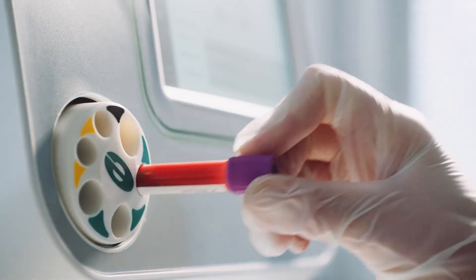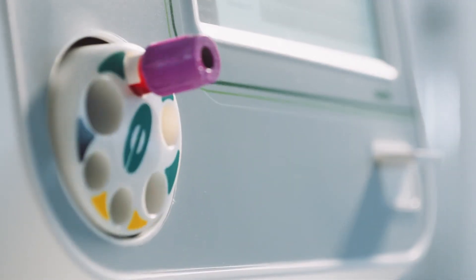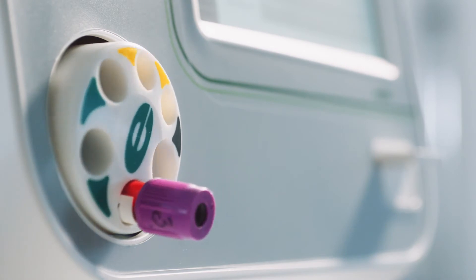It provides a complete blood count, including a four-part differential. The analyzer also has a built-in mixer system, allowing efficient sample mixing while saving bench space.